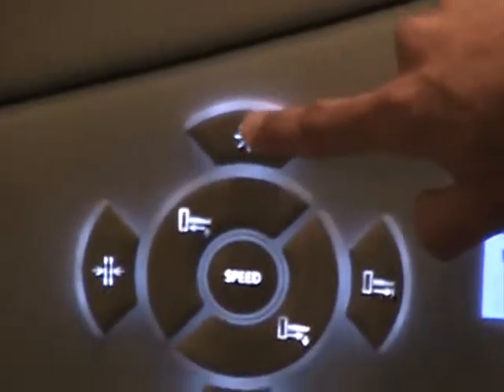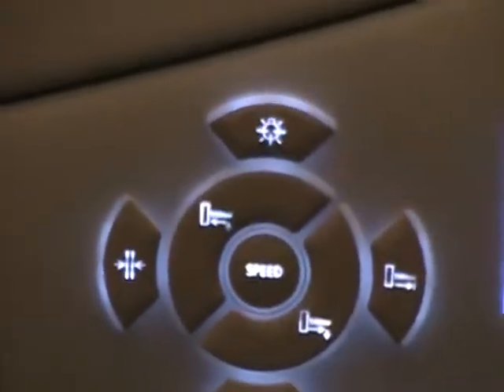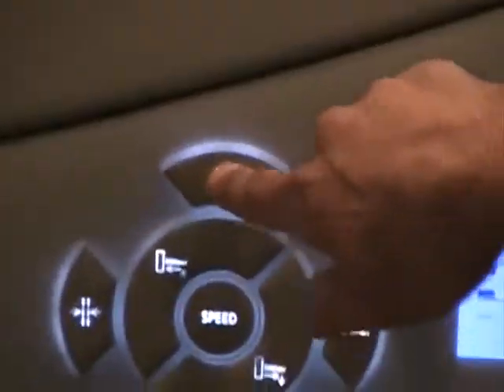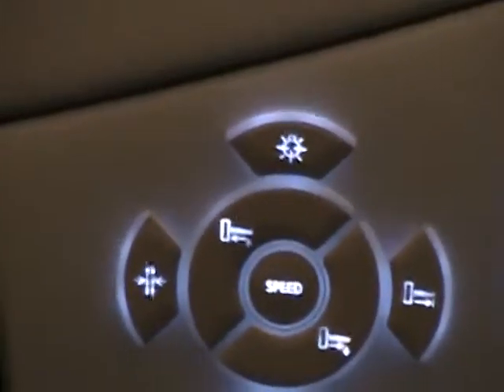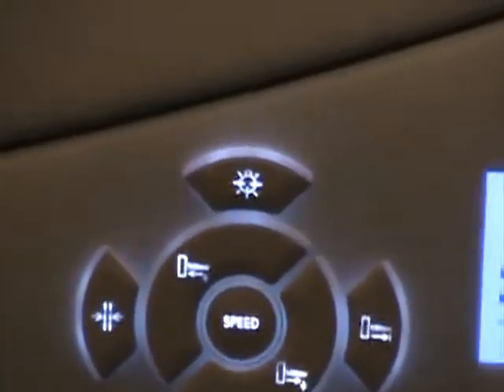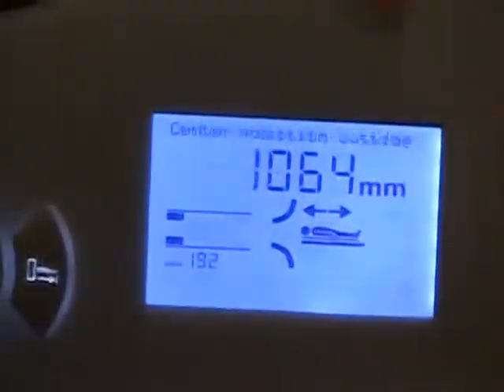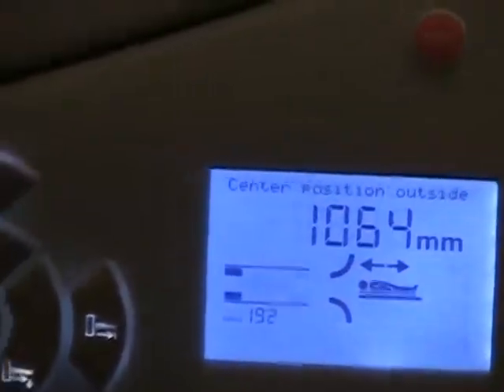So now all you have to do is press your centering light on, the red light is on, and then just turn it off. And now it returns to 1064, the centering position.